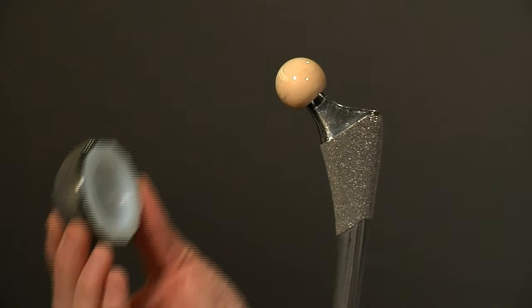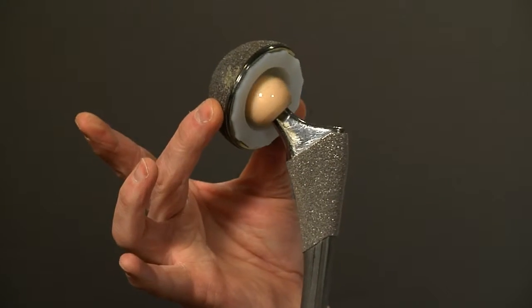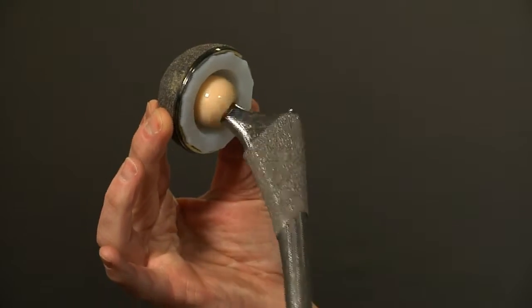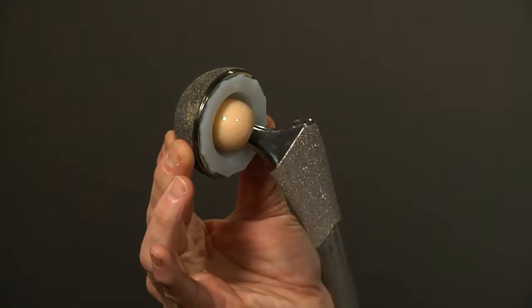Then a polyethylene liner and a metal socket are placed in the pelvis to complete the joint replacement. The motion through walking and activity would occur through this range of motion.